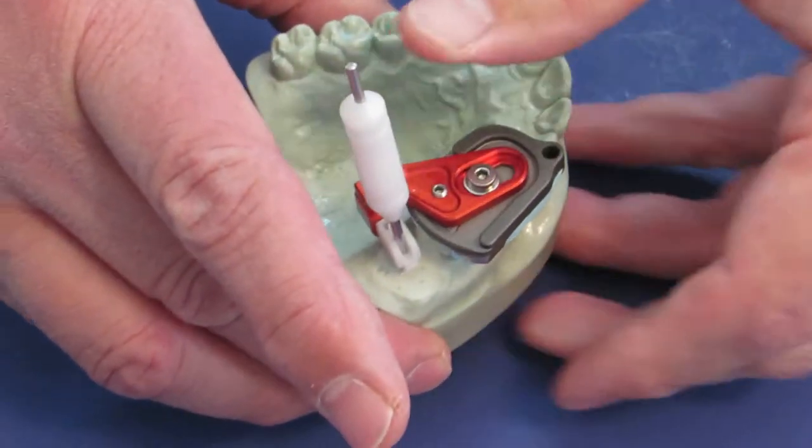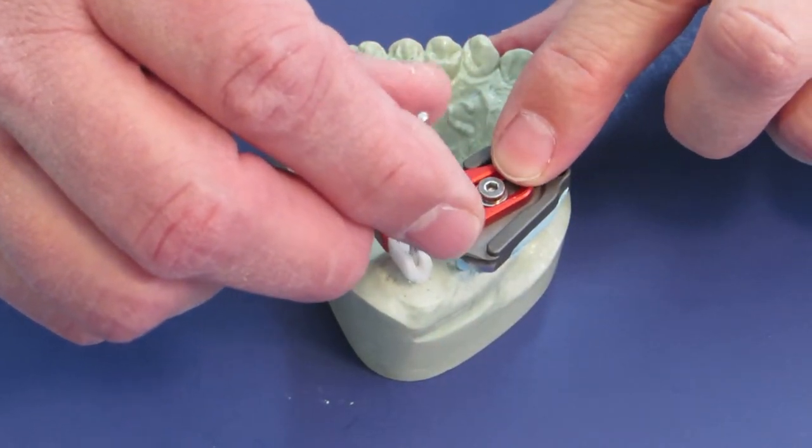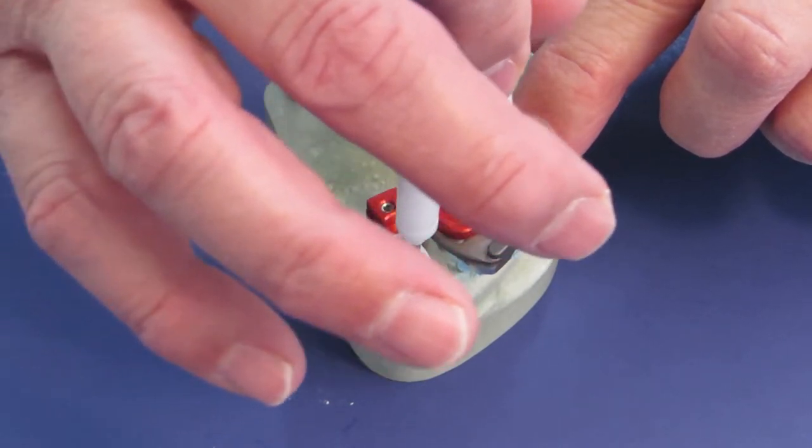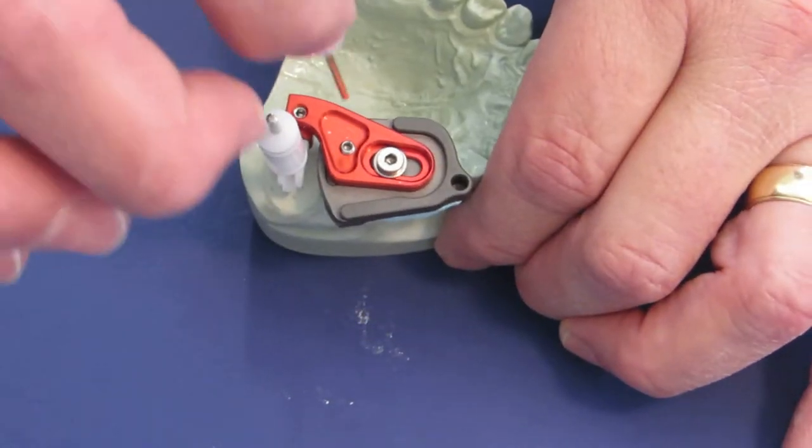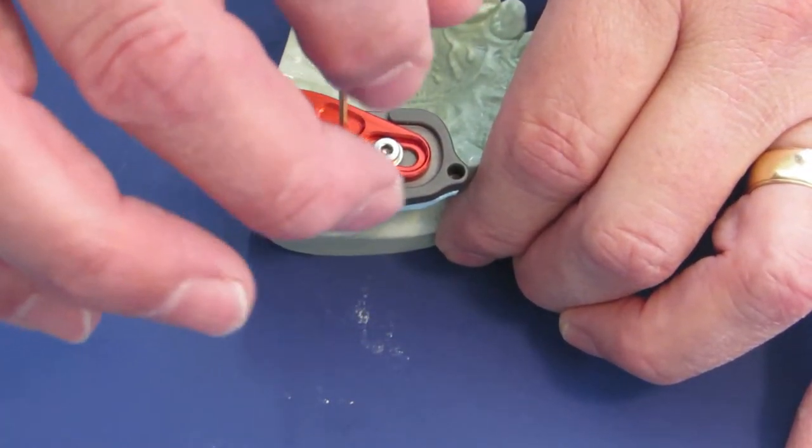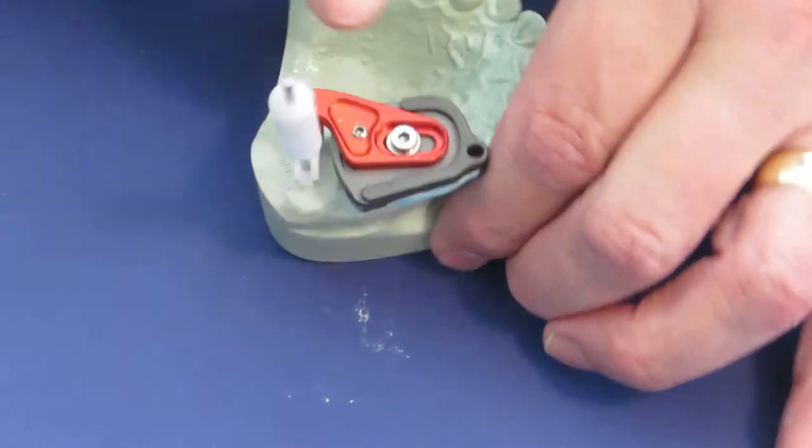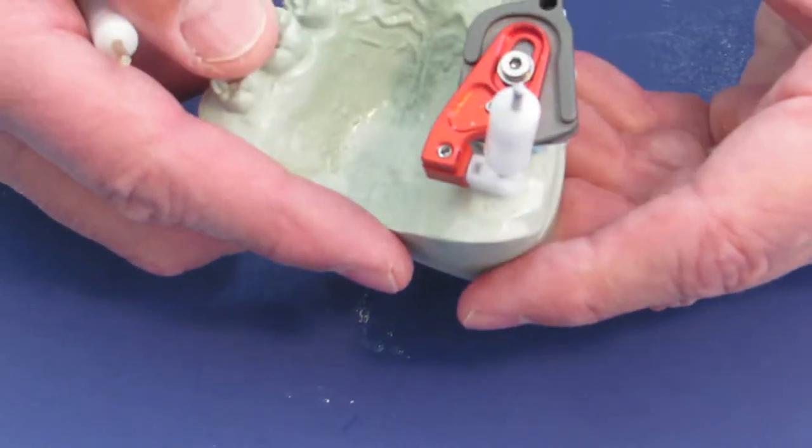Now I am able to hold it in that position what looks close. Now I can tighten screw number one and then the locking screw right in front of it. And now this arm is locked in place and it makes this much easier to do the final adjustments.